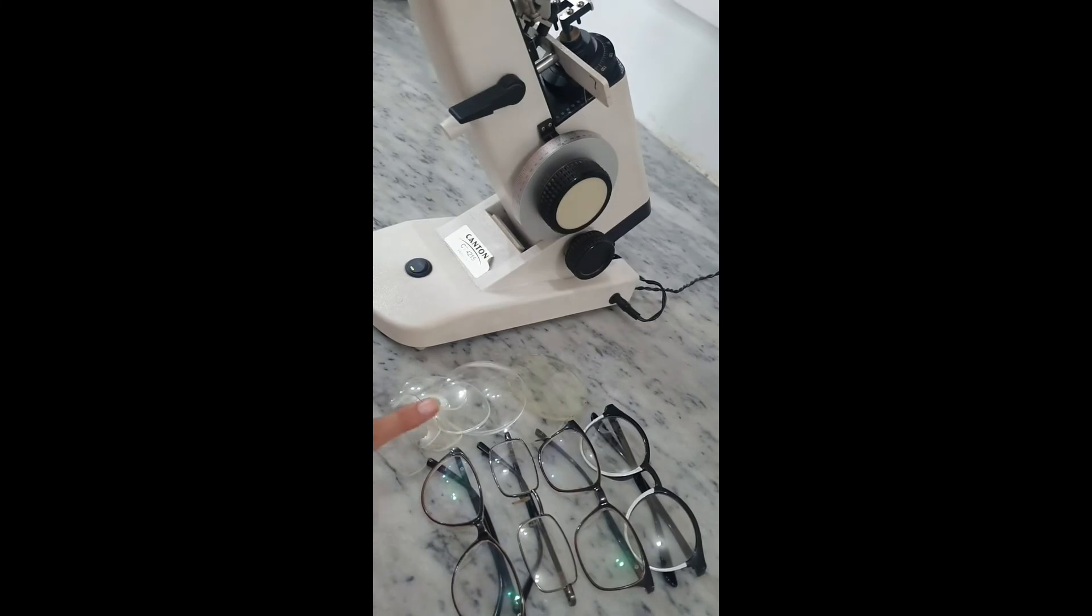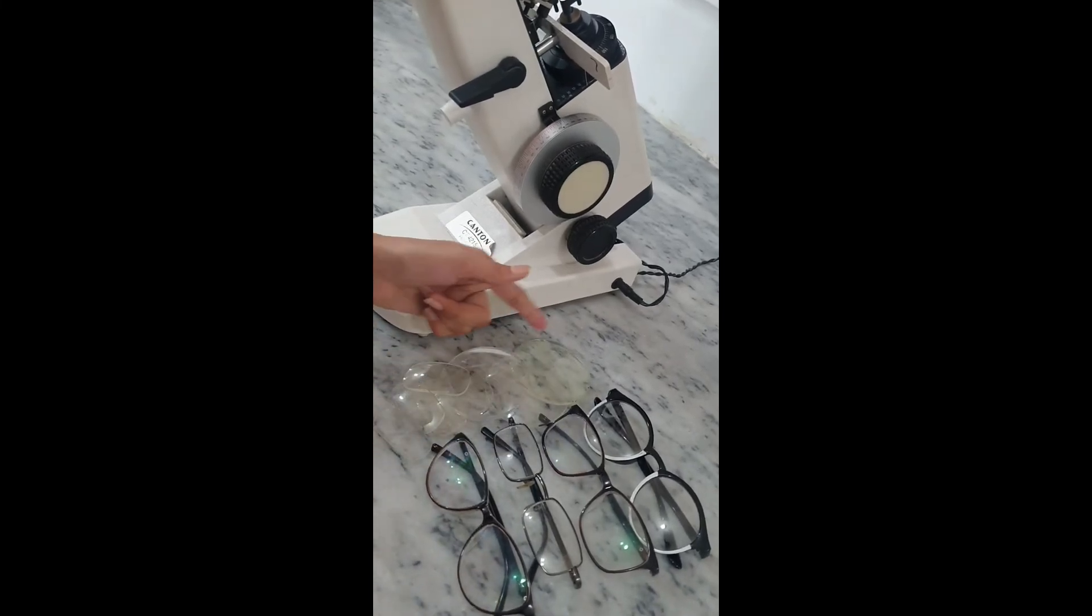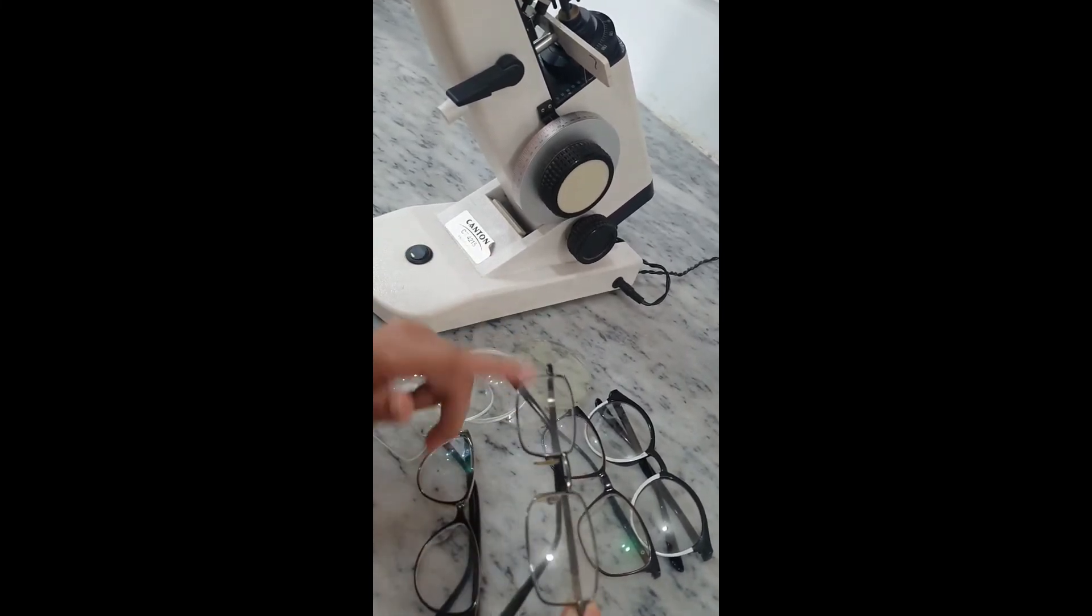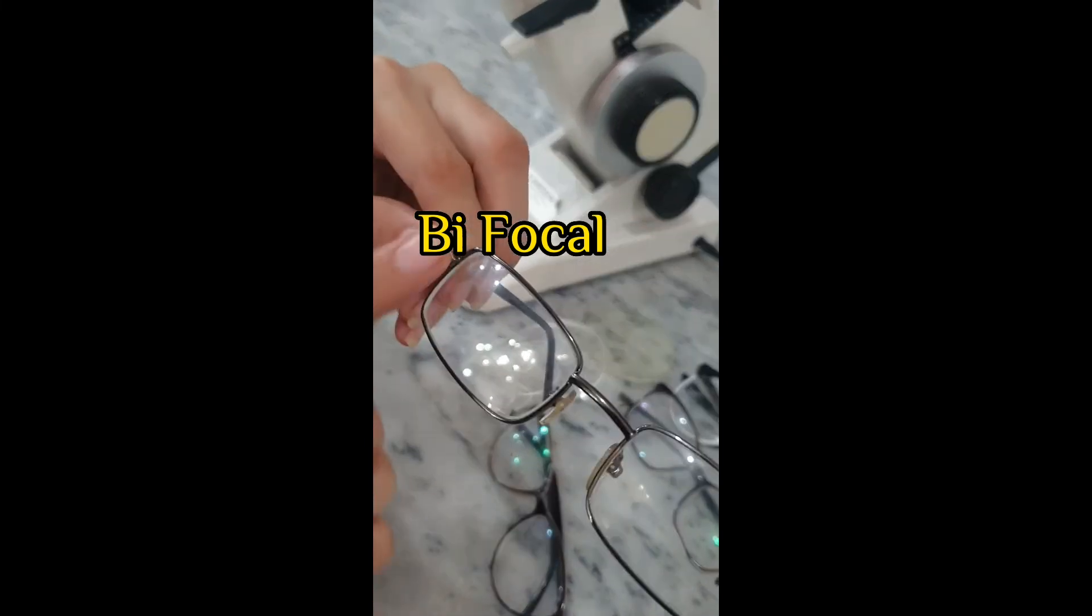By using lensometer, can measure different type of lenses like spherical, cylindrical. Can also measure trifocals and bifocals.